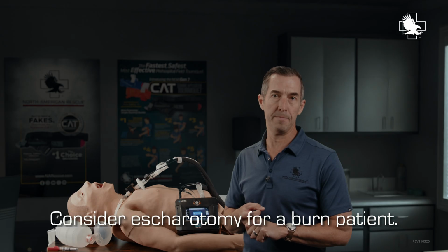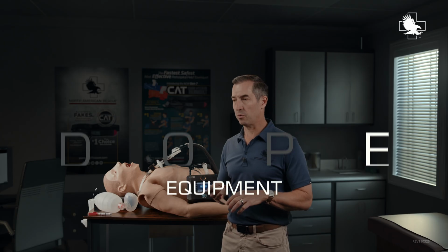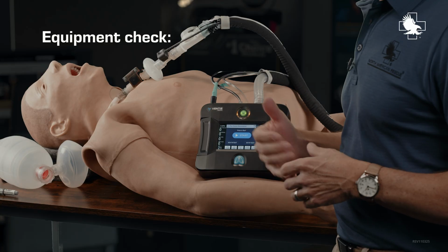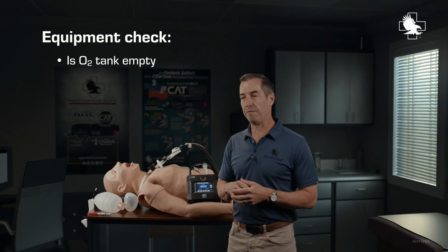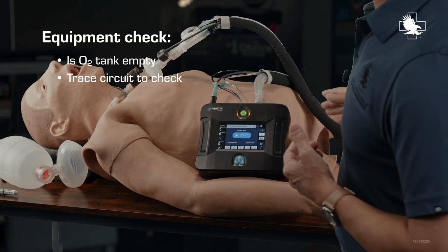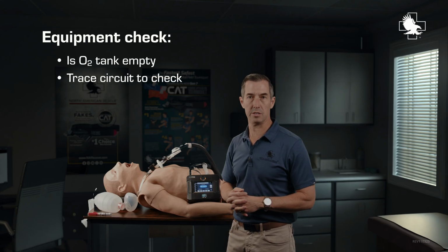Finally, the E in DOPE stands for equipment. So equipment, pretty simple to check. We're going to take a look at the ventilator, see if it's failed or if it's still pumping air in and out. Is my O2 tank empty? And then finally, I'm going to trace that circuit all the way from the ventilator to the patient to ensure that I don't have any obstructions in there.